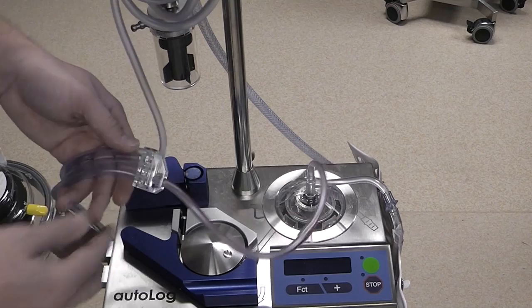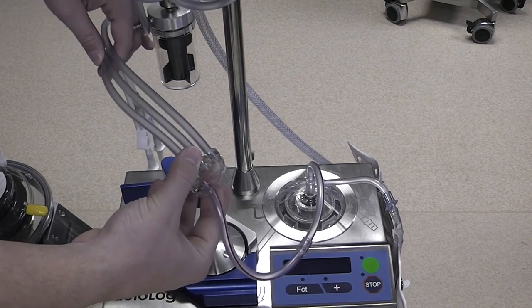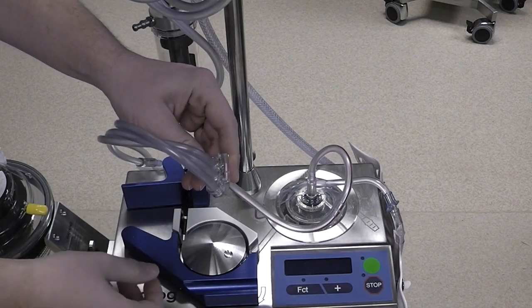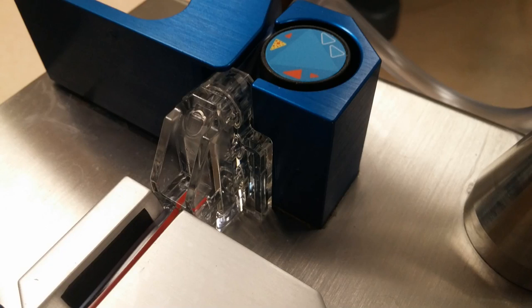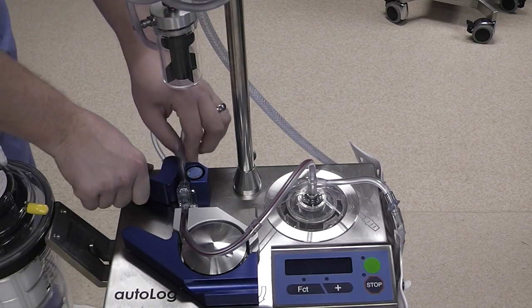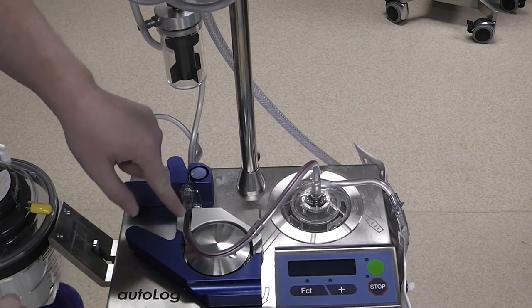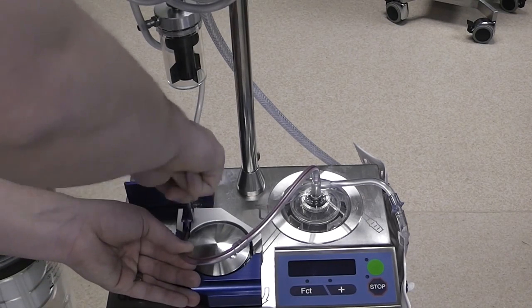The next part is the trickiest part of the setup. We want to find this fitting that has one line with a red stripe on it coming from the wash bowl and three lines coming out the back. We want to open up this lever and insert that fitting with the flat portion of the back of this fitting resting against this surface. Now that we have this fitting fully seated we want to align these three tubes with the corresponding slots on the back and we can close that lever. Next we want to find this tool — some people call it the pizza cutter tool — and we are going to use this to seat this tubing into this slot, keeping that red stripe facing up and just using that to press it down.